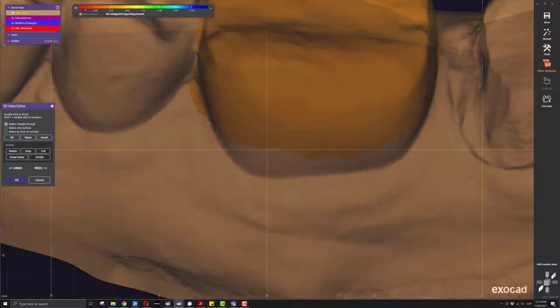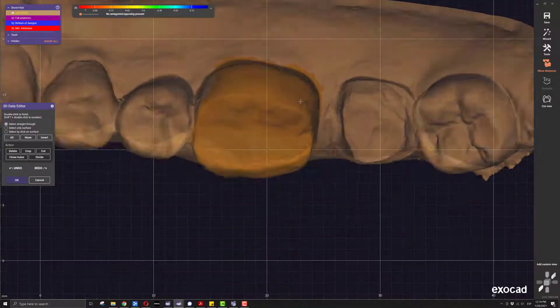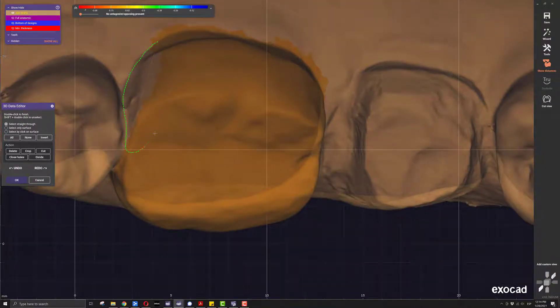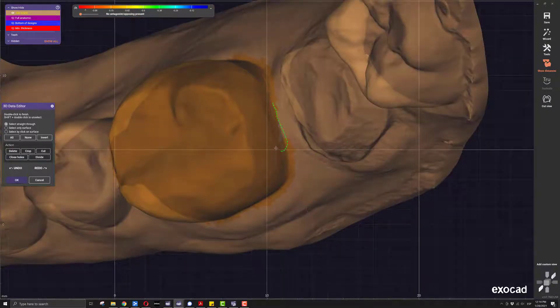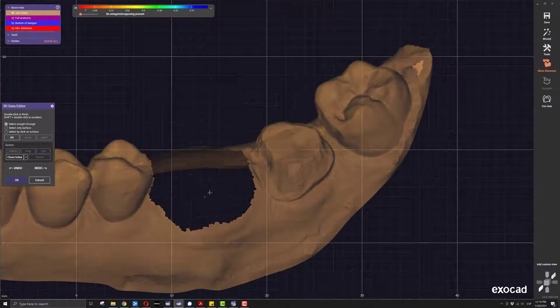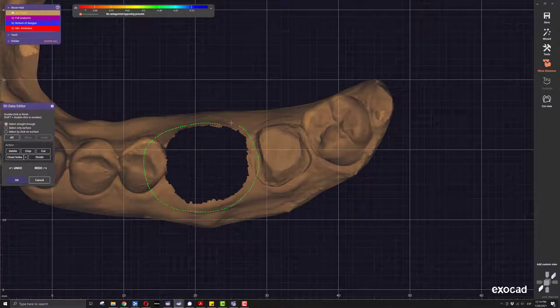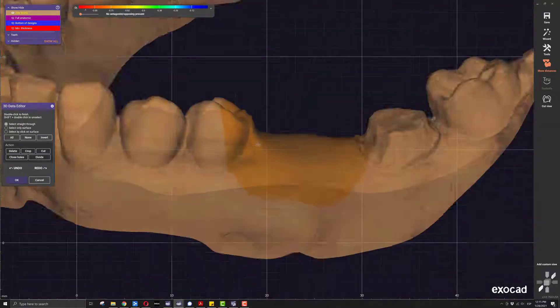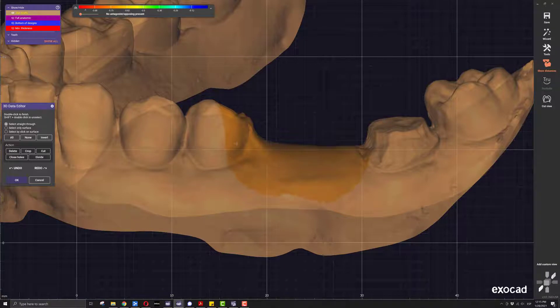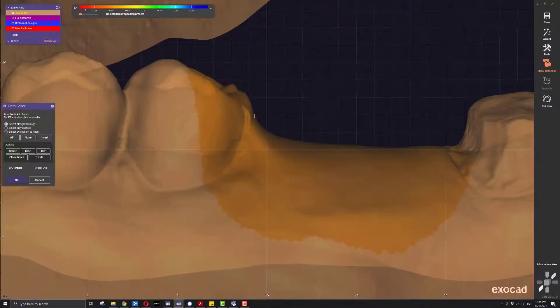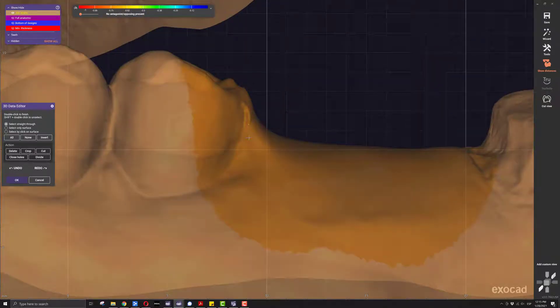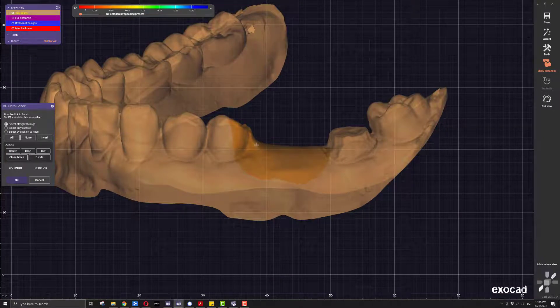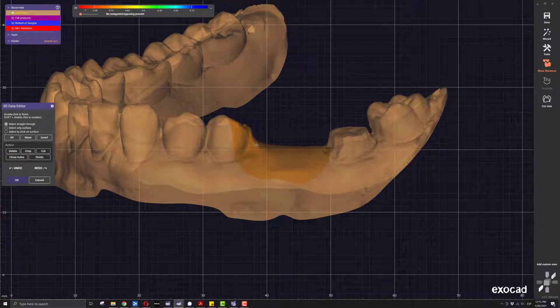As I rotate, I make sure I am just looking at background through the model instead of the other side. I select the tooth that I am extracting, then I can tell the software to delete. Then I select the circle and choose close holes, and the software will close it. After this, in expert mode you have the option of free forming the scan data, and you can give it a better shape or detail the proximal area a little bit better. That is one way of doing extractions in a version of the software that is not Galway.